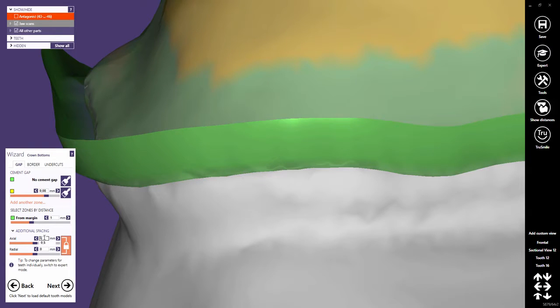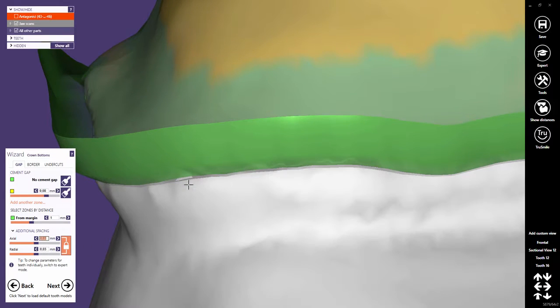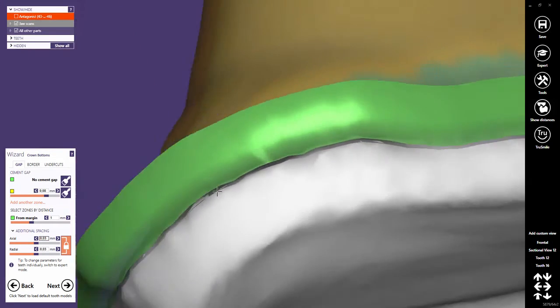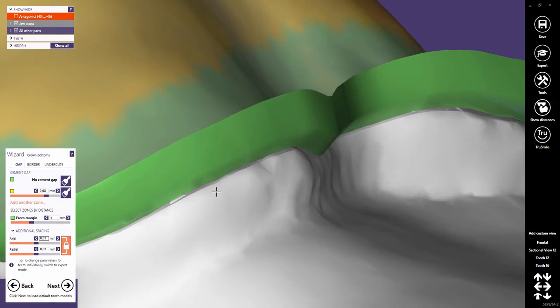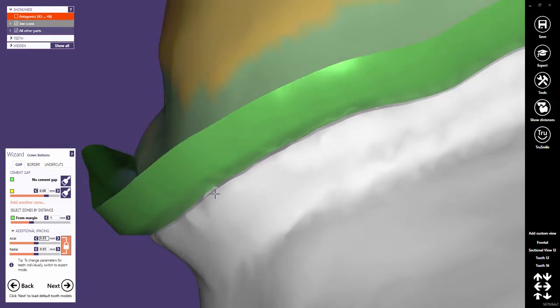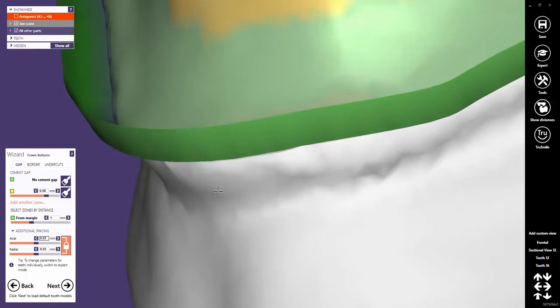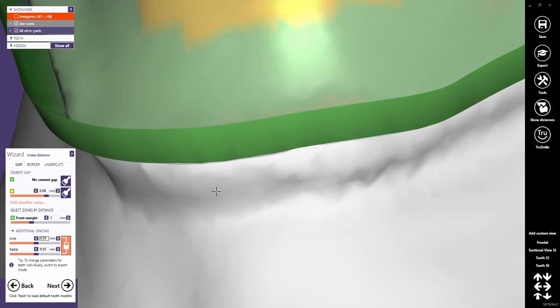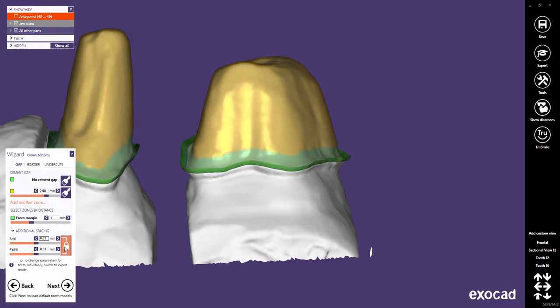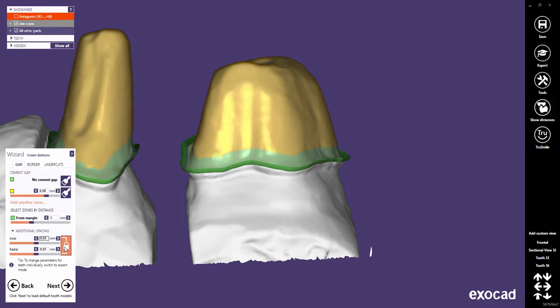Some people might want to use the parameters to create a thin gap in the green area. But it is important to know that these values will be applied in addition to the cement gap. In this case, this would result in a real cement gap in the yellow area of 0.11 millimeters. It is recommended to keep both sliders locked to ensure equal space in all axes.